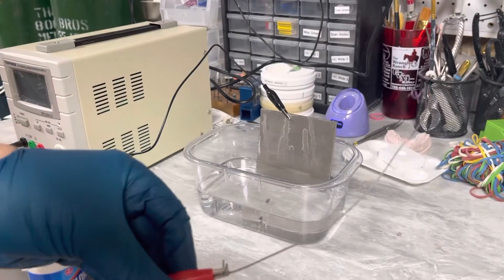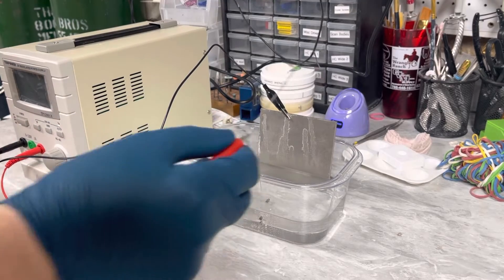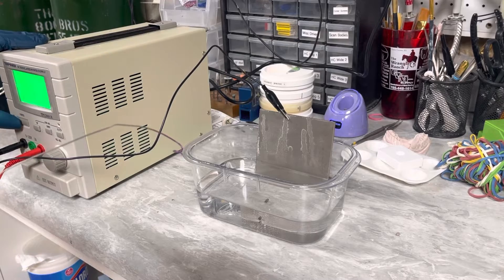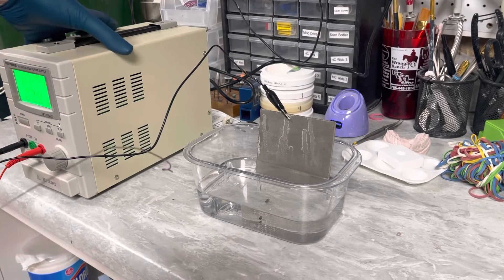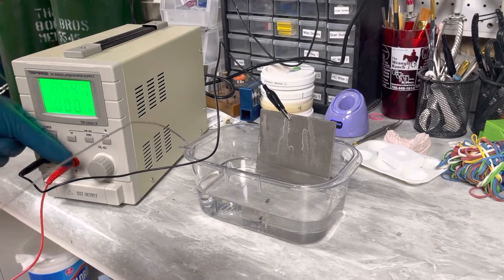And then I've got this clipped here just like this, and then my grounding wire is clipped to the grounding plate there. And if you see here, this is set to 64 right now.